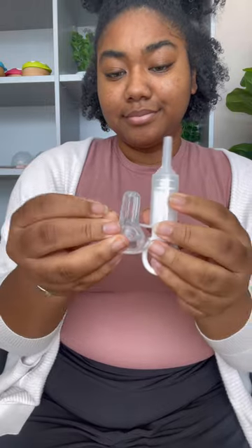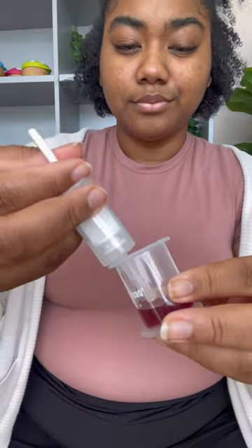When you're ready to give medicine to Bub, first take the silicone tip off the syringe. Put the amount of medicine you need into the measuring cup, then suction it into the syringe.